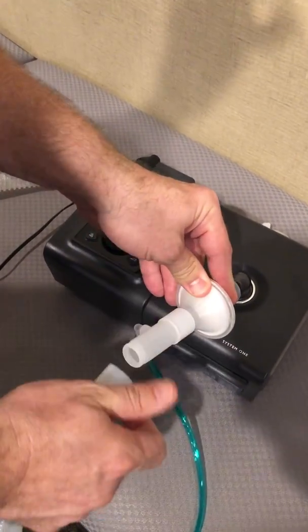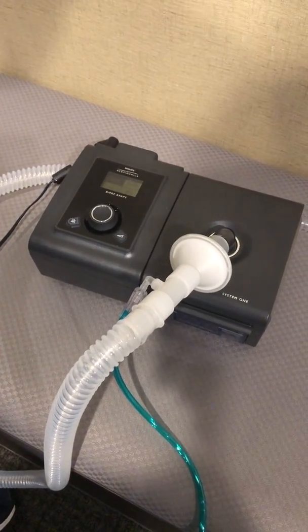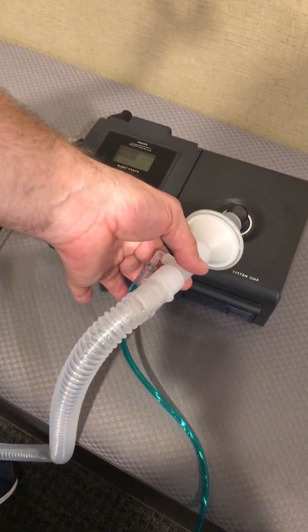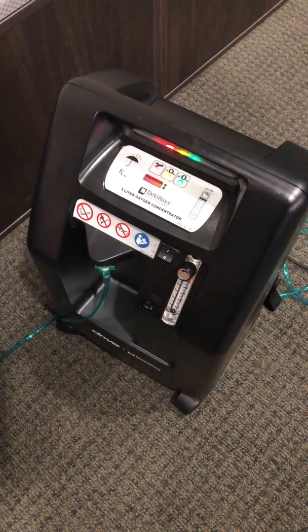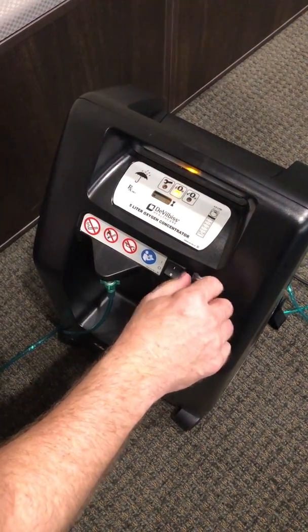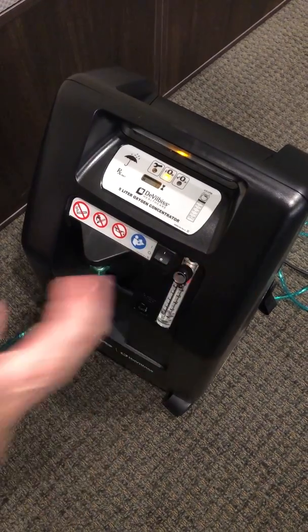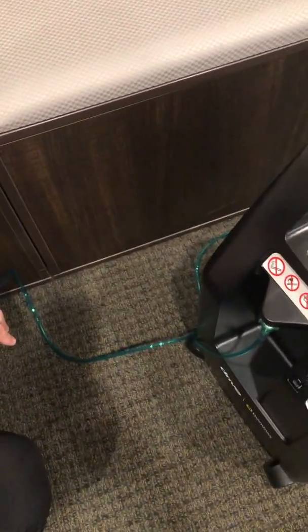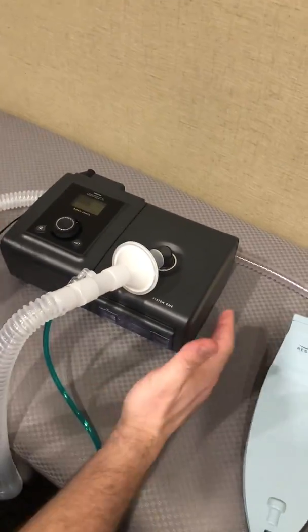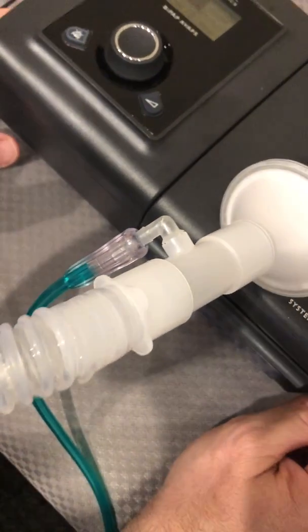I'm going to put it back here closer to the machine — this is a very movable part you can put in line just about anywhere, but depending on the patient's needs you may have to adjust that. Right now we have our O2 enrichment adapter with our oxygen supply line tubing, and we are going to hook that up to a standard home concentrator. I'll now turn that on and turn up the flow — just for demonstration purposes we're going to set it at four liters per minute. So now we have our oxygen being bled in via an enrichment adapter to our BiPAP AVAPS unit, and it is ready to be set up on a patient being ventilated invasively.